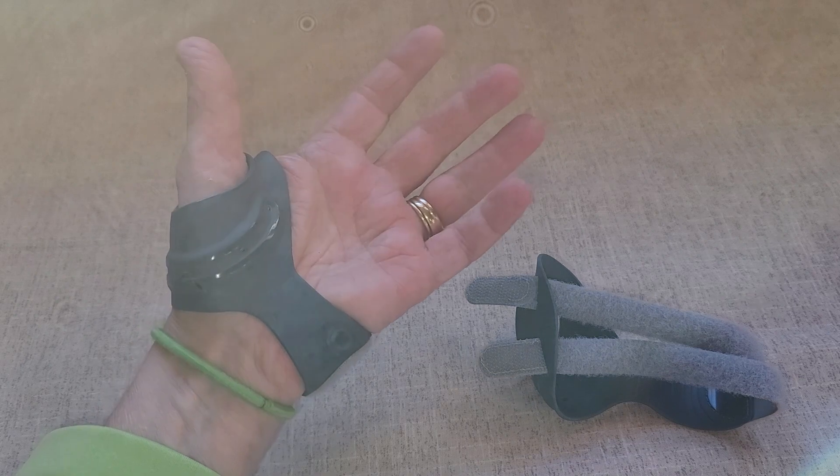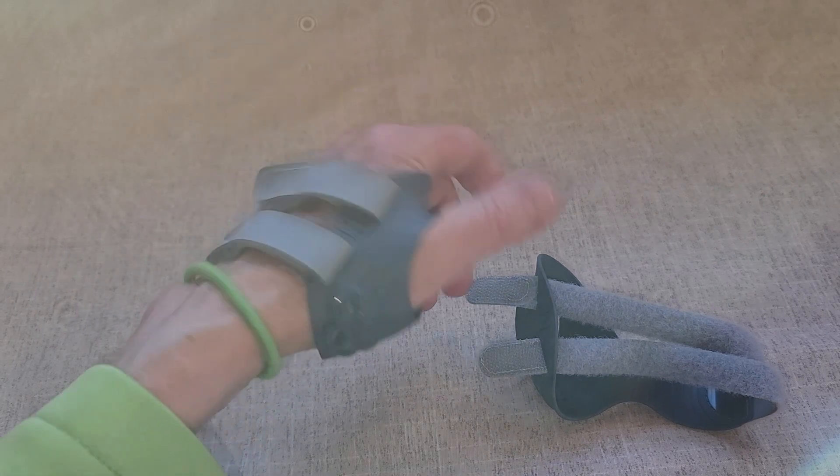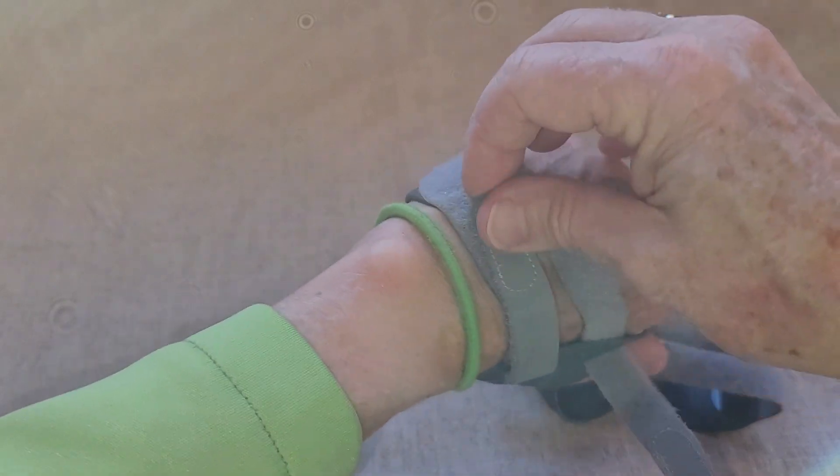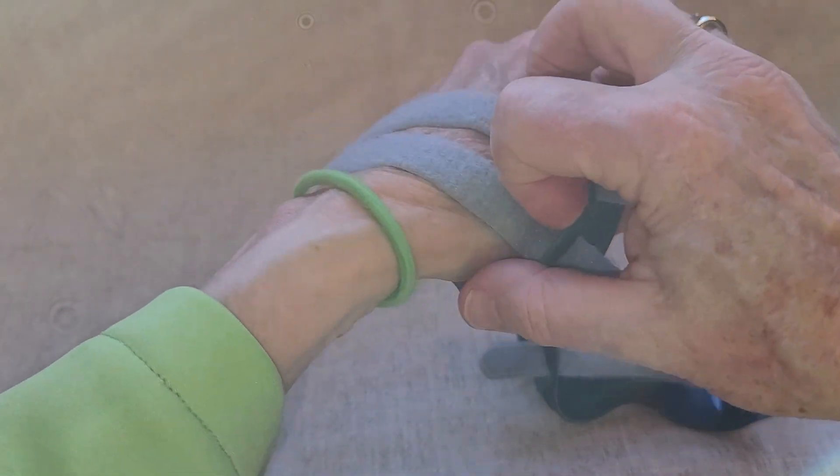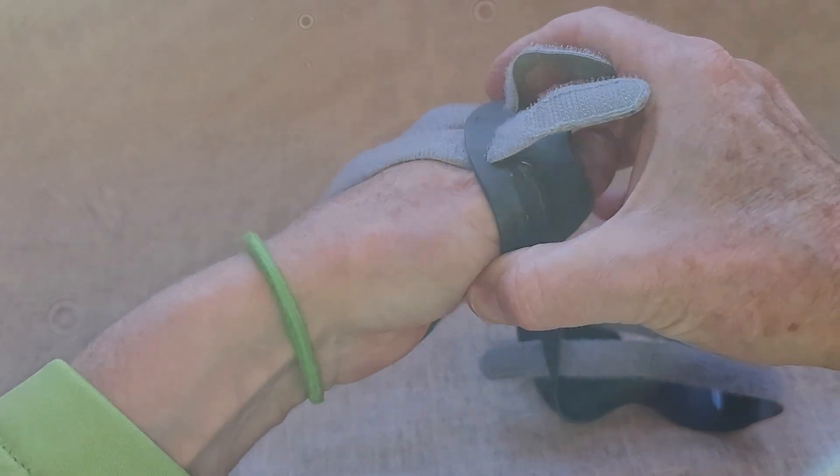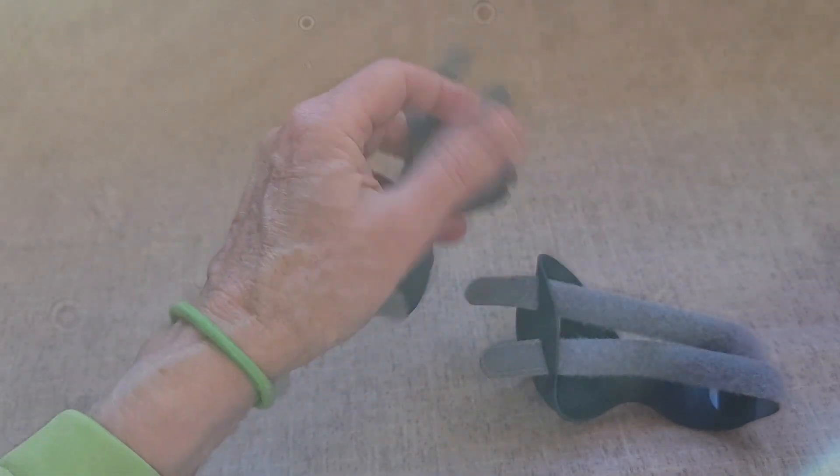I've worn this all day at work and not had any issues whatsoever. I'm sure over time the Velcro will wear out, but for right now it's holding really well, and it does really help my thumb out a lot.